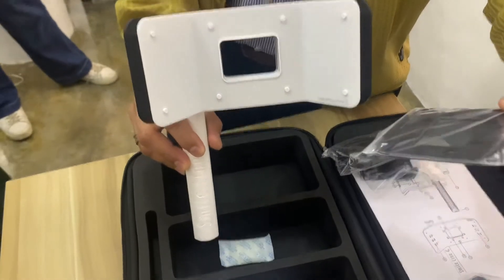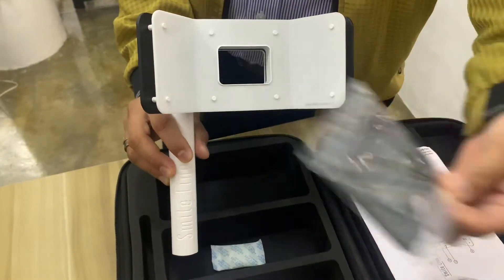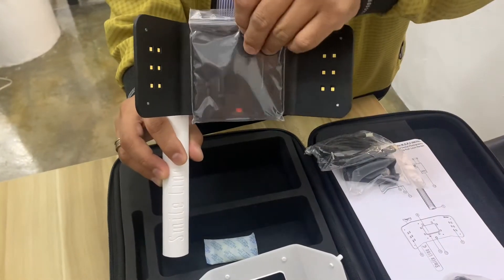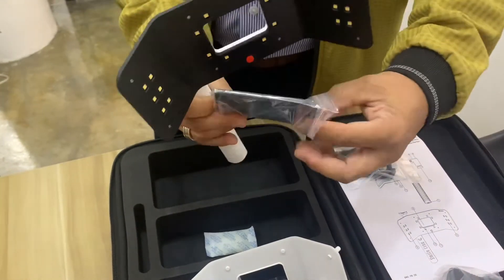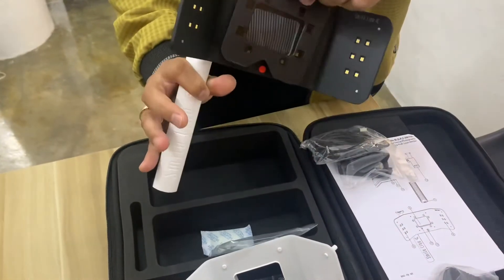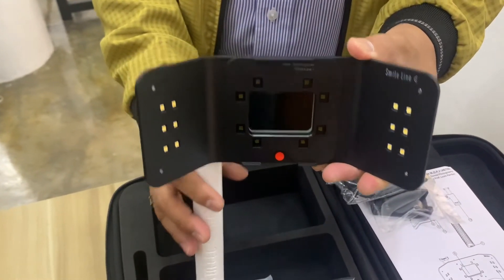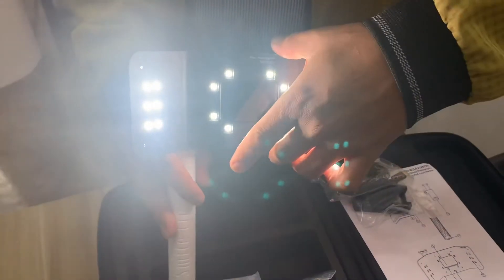The polarizer is also magnetic — you can put it on like that. Let's remove the plastic cover to clean it up. There you go, very nice. That's how the polarizer attaches. Very good.